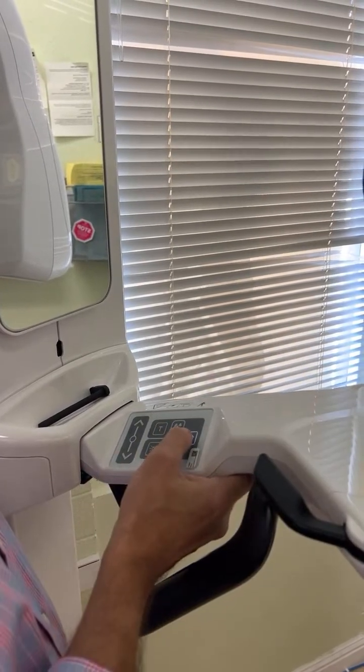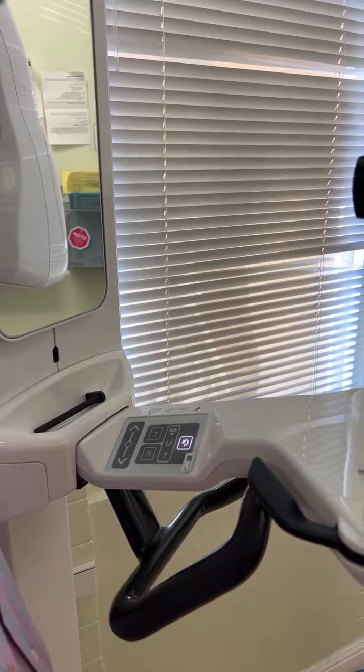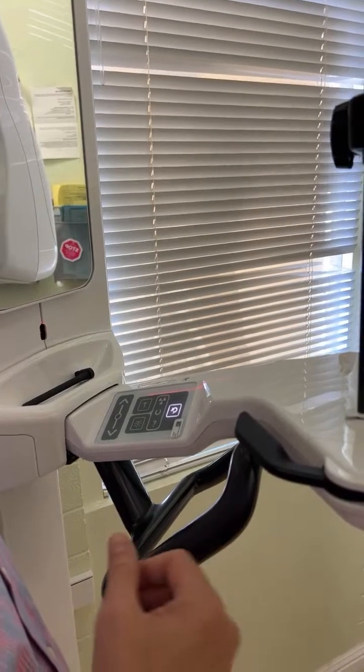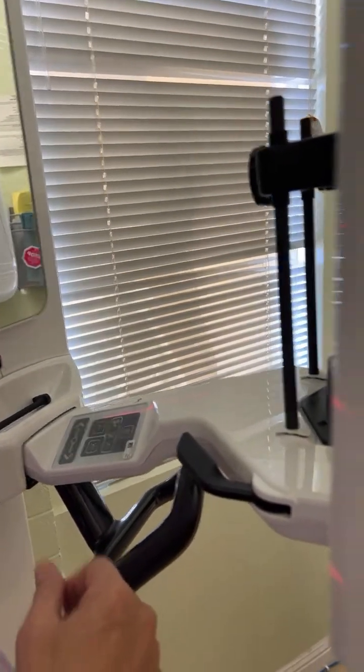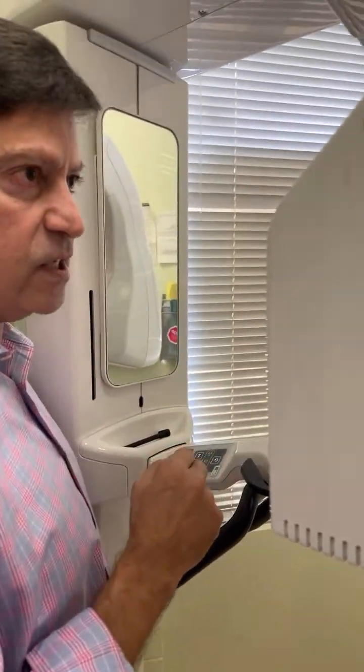So right now, you recommend every morning we just turn it on? I don't know if she, oh, there it is. So there it goes. Yeah, every morning turn it on. We hear the little sound that means we press it, right? Okay. Yep. See that interaction that just happened? Now if we go out in the office over there, look and see what it says now. It should look different.